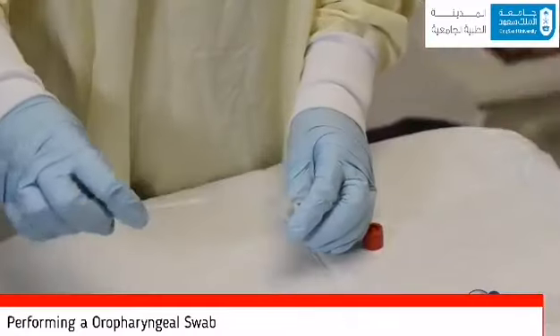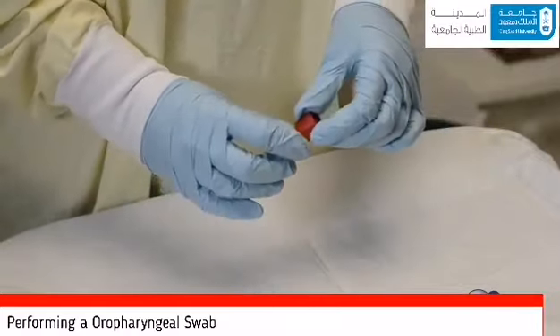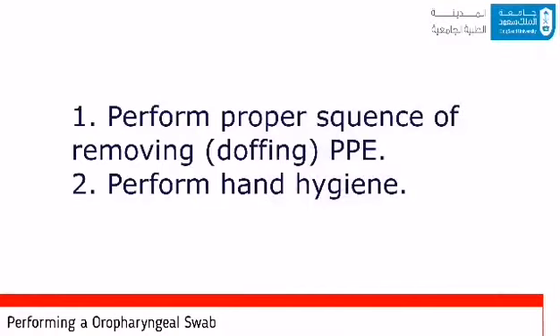Make sure that the viral transport media is tightly sealed and properly labeled before carefully placing inside a biohazard bag. Remove your PPEs without contaminating yourself and the surface and perform hand hygiene.